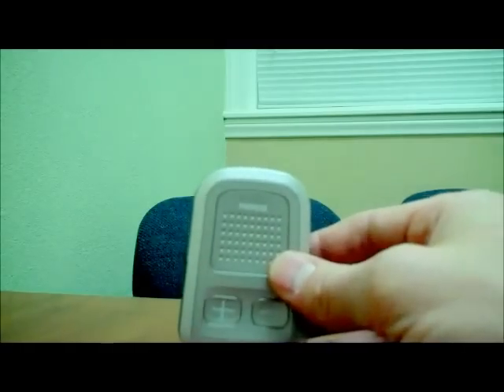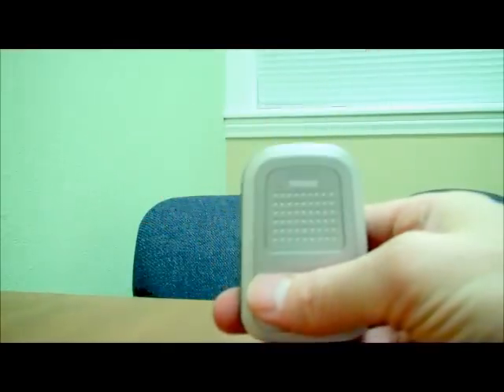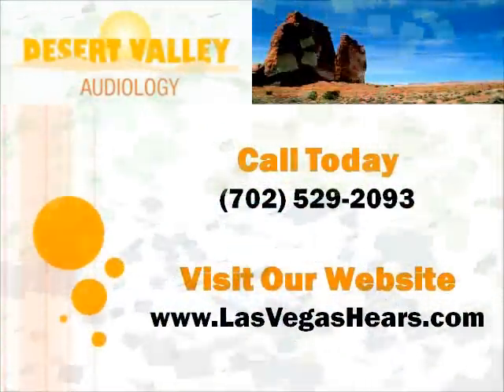After resetting, you would have to go through that same procedure again — hold down the plus and the connectivity button on the side and pair it to your phone. That's often what you should do if things aren't working properly.